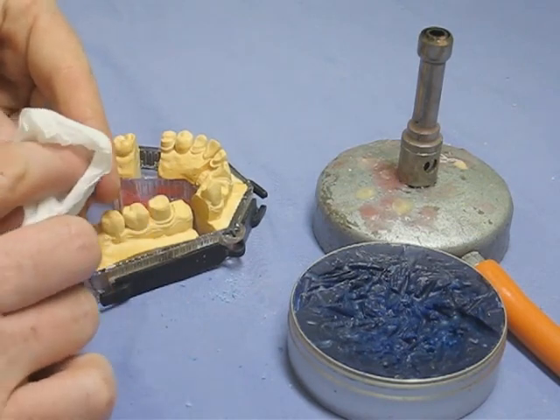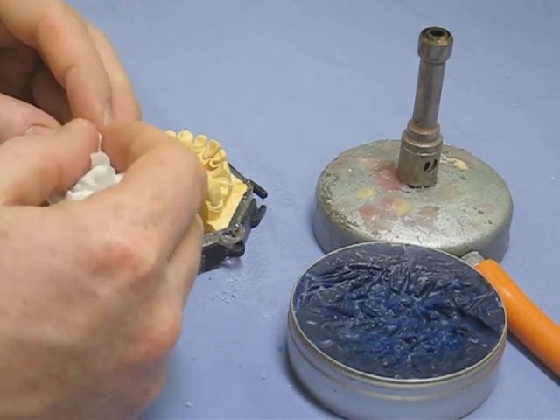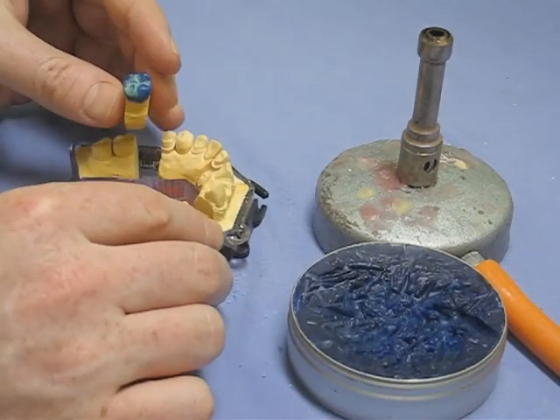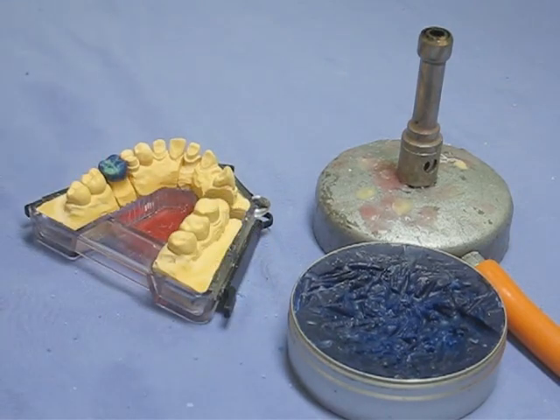It's worth mentioning that all this skill and practice is disappearing with the use of CAD/CAM technologies. It is possible now to produce using CAD/CAM a plastic crown in the same way we choose to wax one here, which would also then be cast in the same way. So, progress.